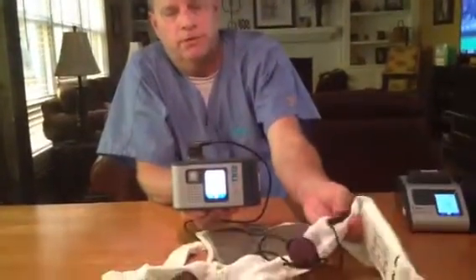Okay, so that's the siren. The other alerts on here are gongs. Gongs are good. Gongs are strictly mechanical. You'll see the lights are not illuminated red. When this is plugged into the life vest belt, it's one circuit. Any of these components come off your skin or are loose and not snug, you'll receive a gong.